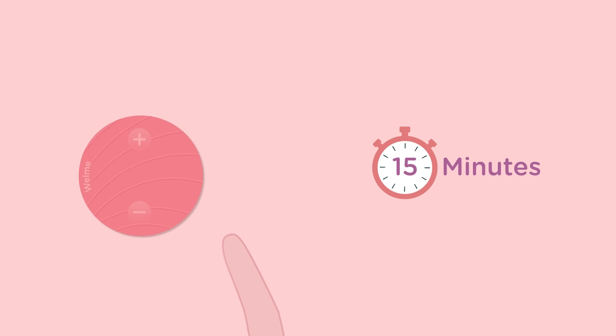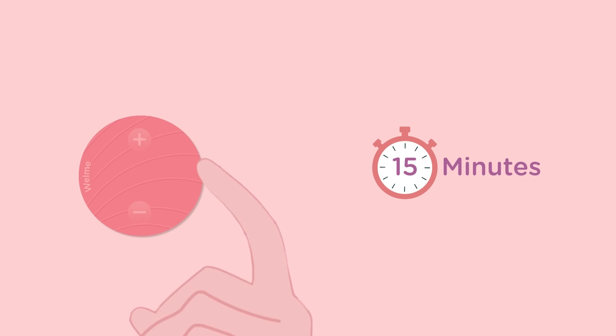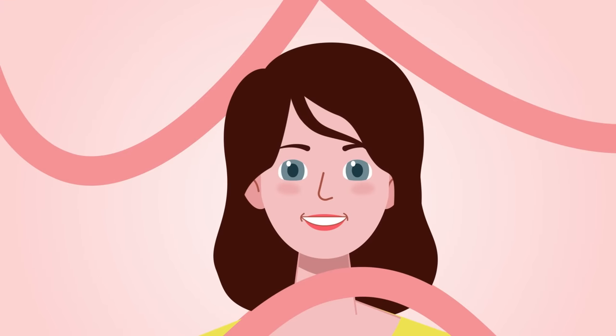However, to manually turn it off, press the power button to bring the intensity down to neutral. The device will automatically shut down after 30 seconds. So easy, isn't it?